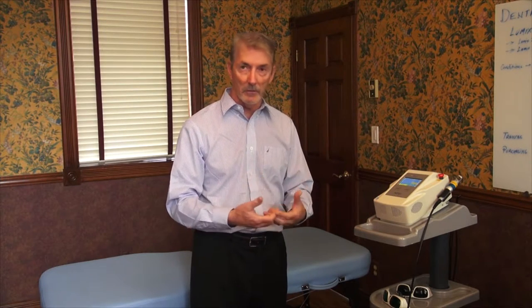Inflammation management — these lasers are tremendous in situations of dental cleaning. If the therapist goes in and treats the gum structures after a thorough cleaning, they can reduce inflammation and increase patient comfort profoundly — that is, within minutes. So patients can walk away with a better experience and a faster recovery, because it will accelerate healing and repair.